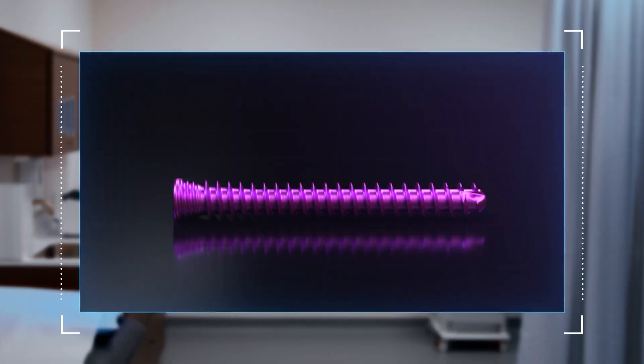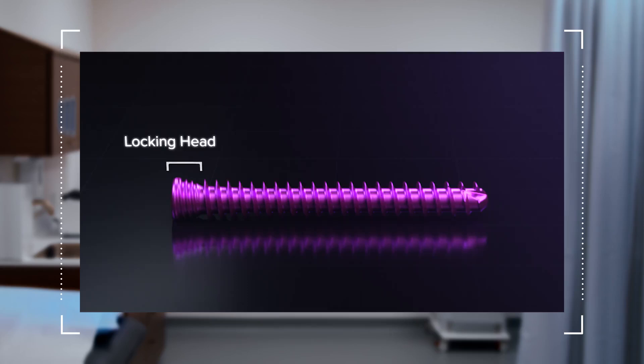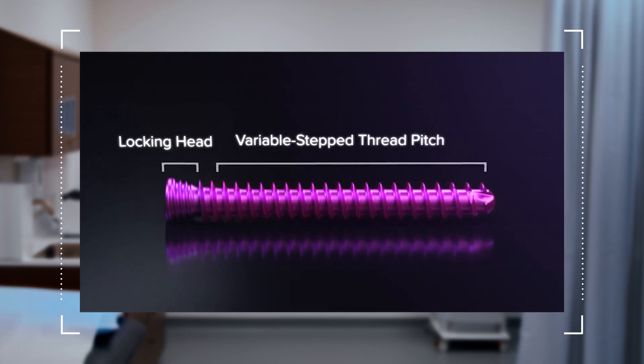They feature a variable step thread pitch, are compatible with existing plates, and are available both in titanium and stainless steel.